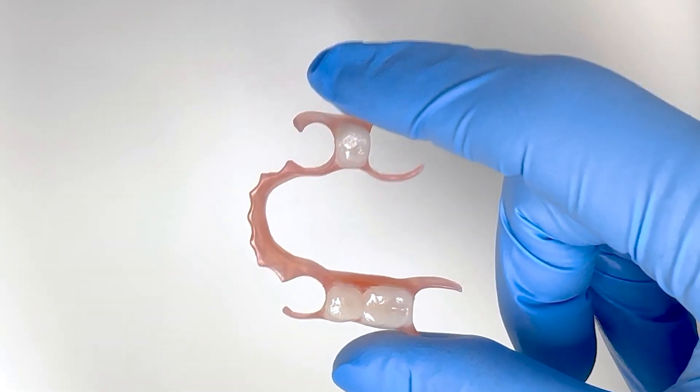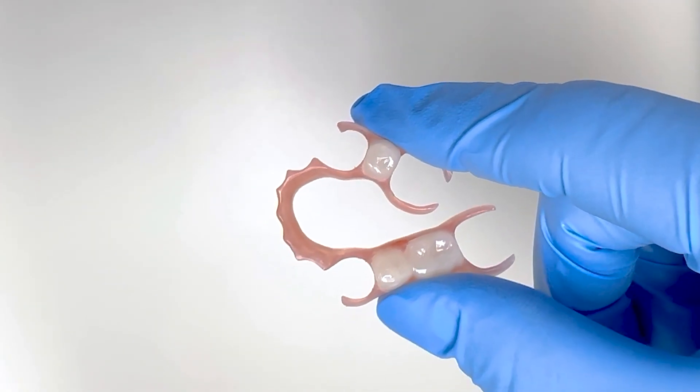Streamline your workflow, boost your practice, and transform smiles with Impress 3D.